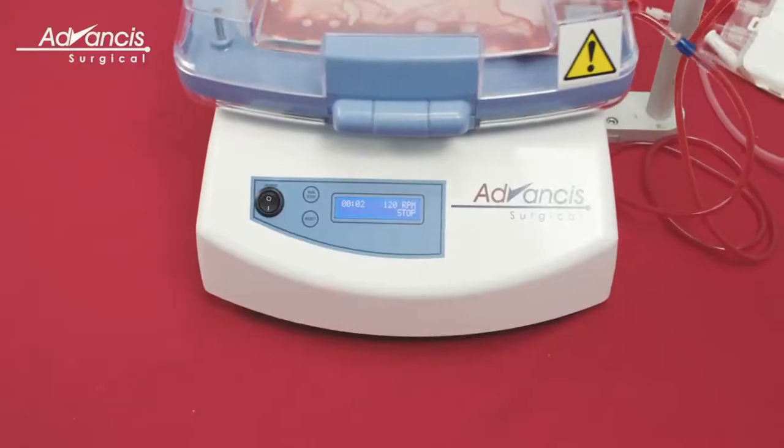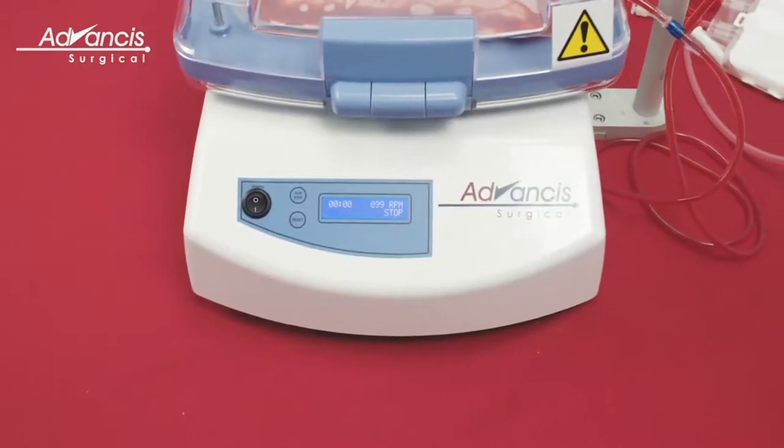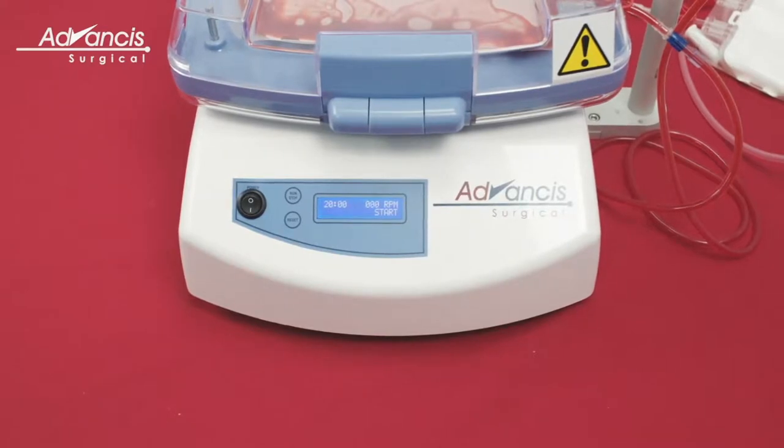The machine will automatically stop after the process has finished. Remove the cell concentrator bag from the shaker.